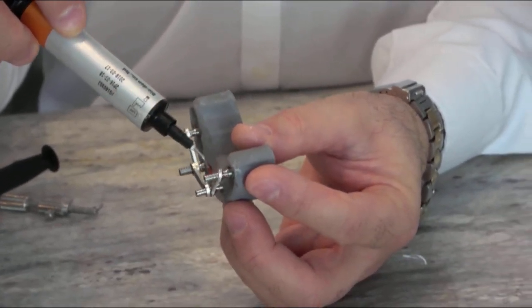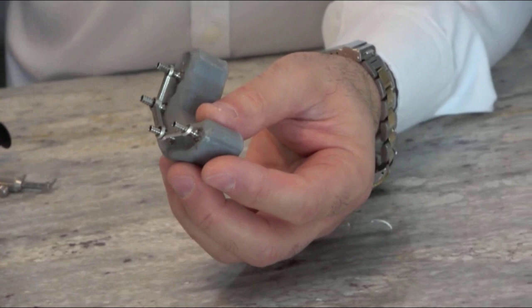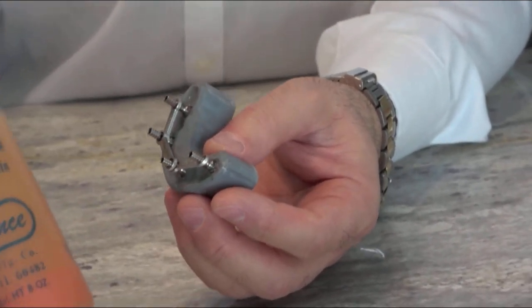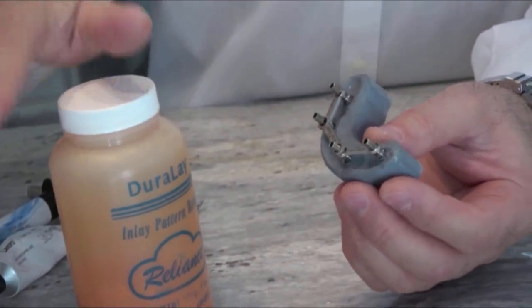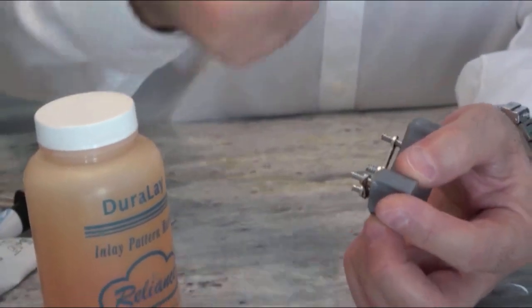You can use Duralay or GC Pattern - either one works. I prefer this because it sets well. You can pre-mix it and inject it with a syringe. I'm going to use the Duralay.